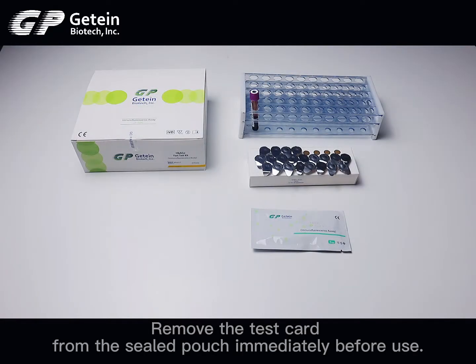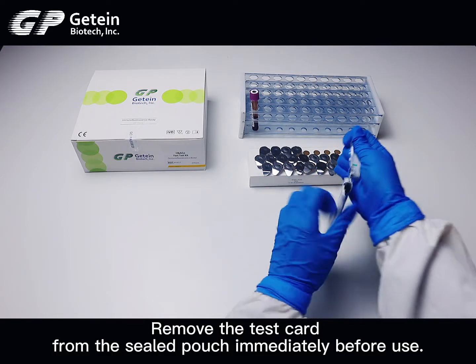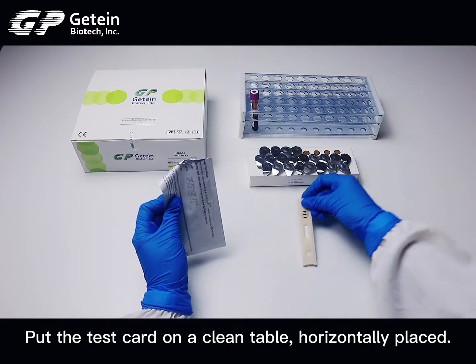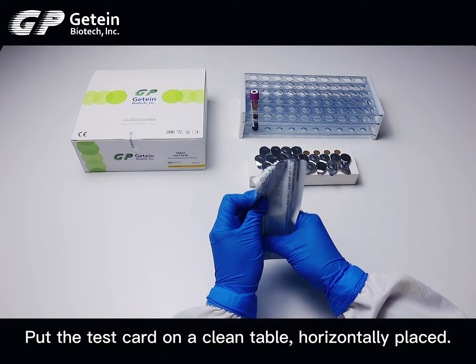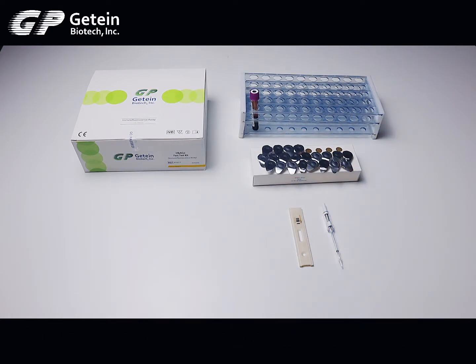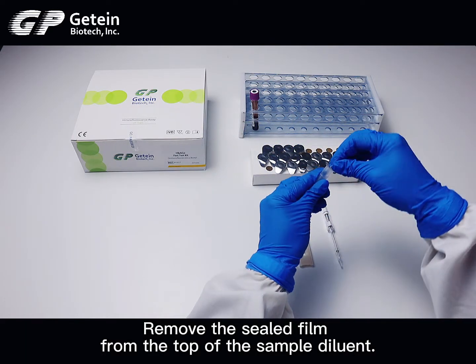Remove the test card from the sealed pouch immediately before use. Put the test card on a clean table, horizontally placed. Remove the sealed film from the top of the sample diluent.